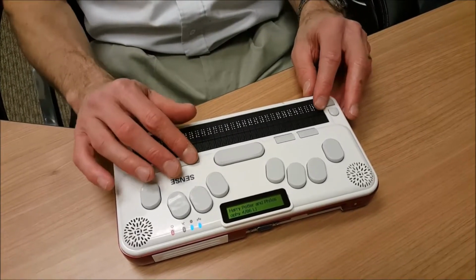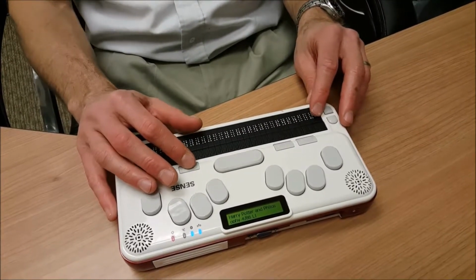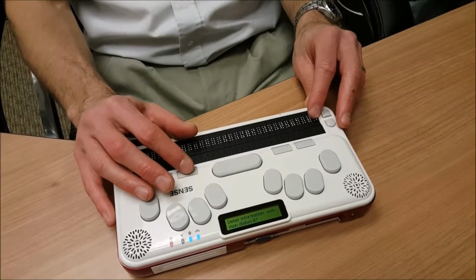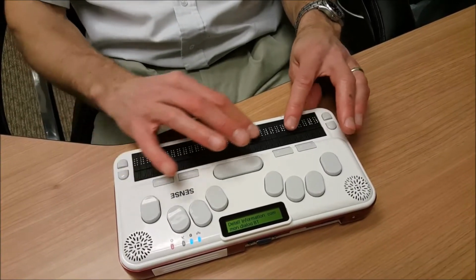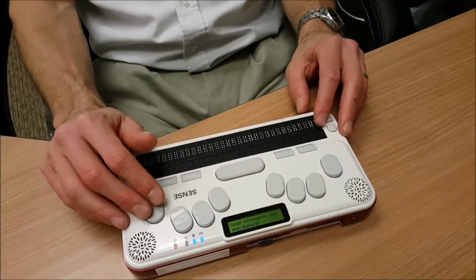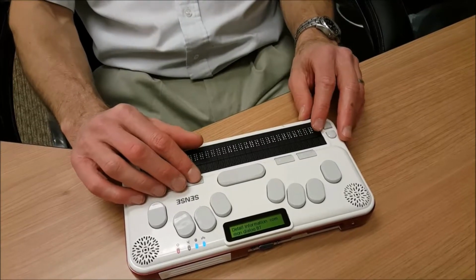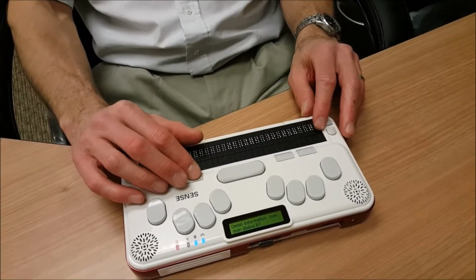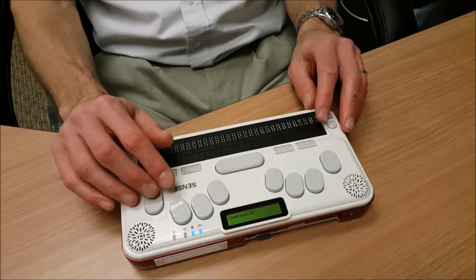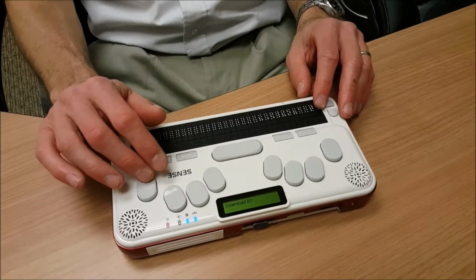If at any time I want to see more information about a specific book, I can press my tab key. Detail information button. I can press enter on the detailed information button, and I can get access to things like the synopsis, the ISBN, and other information. I'm going to go ahead and press my tab button again. Download button. And at this point, if I press enter, I will be downloading Harry Potter and Philosophy.